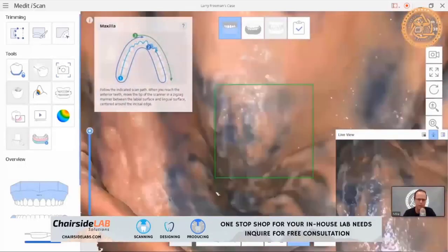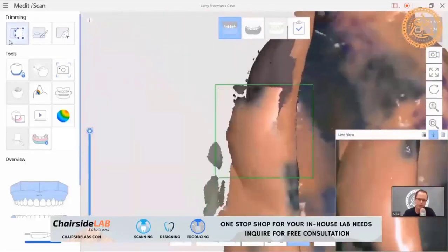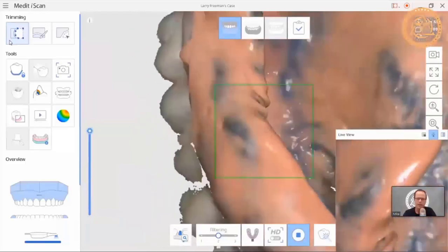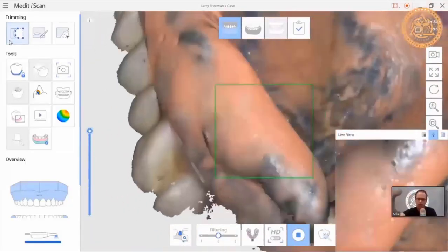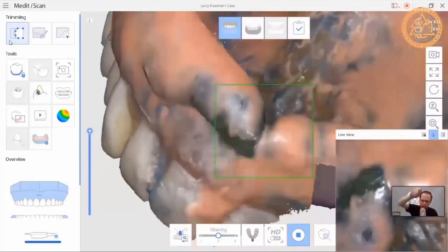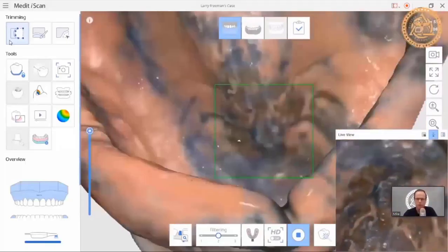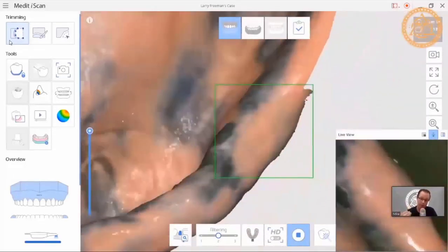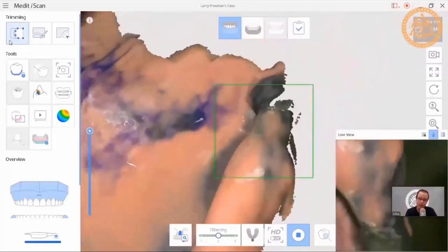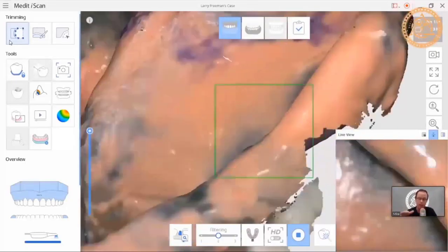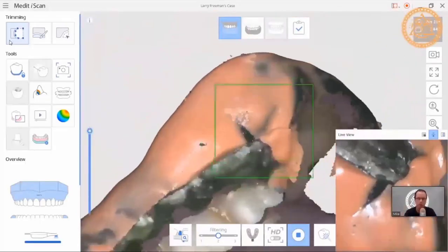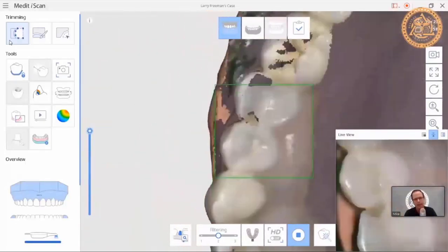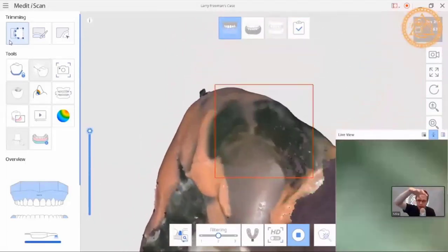Since I'm using my Medit i500 and scanning in color, I scan the impression and then go slowly back and forth to the teeth. I'm rolling the impression — not just going around the outside. I'm capturing the soft tissue side and the teeth side in one 360-degree scan. This particular presentation is not to train everybody on the scanning technique, but on how it applies to the dental technician and how to set up 3Shape and ExoCAD for it.